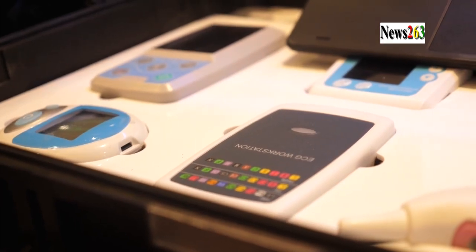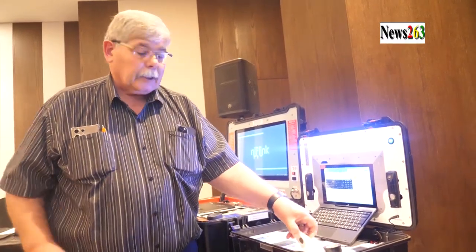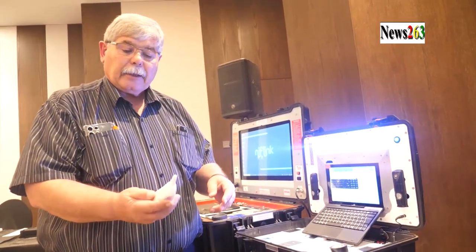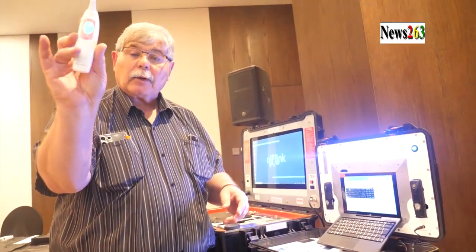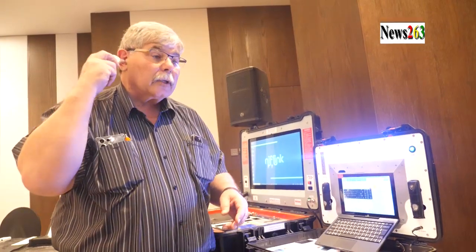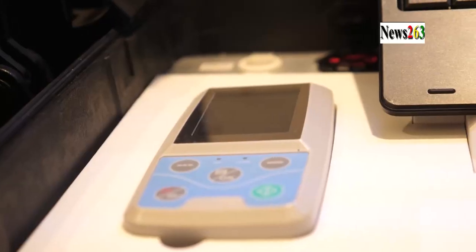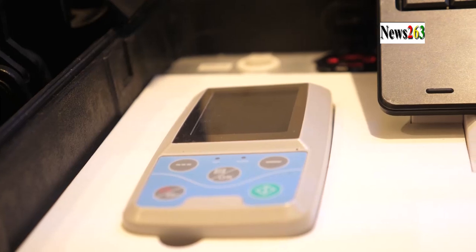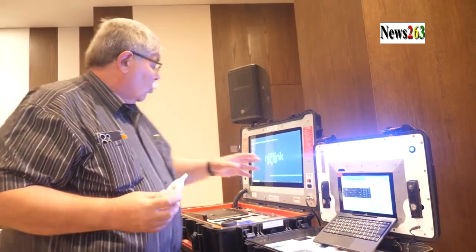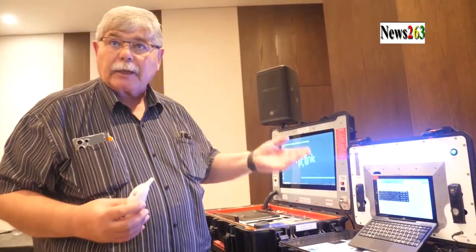For instance, you can take your blood pressure unit, you can take your temperature. You'll take your temperature and you can see it there on the temperature display. You put it in your ear, it will automatically upload to the tablet. And then once you're done with that, it will automatically put it into the cloud where the doctor can see it.